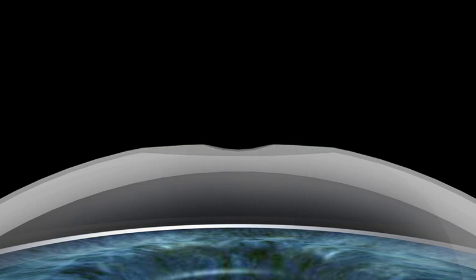TransPRK applied to regular corneas provides efficacious, safe, stable, and reliable results.